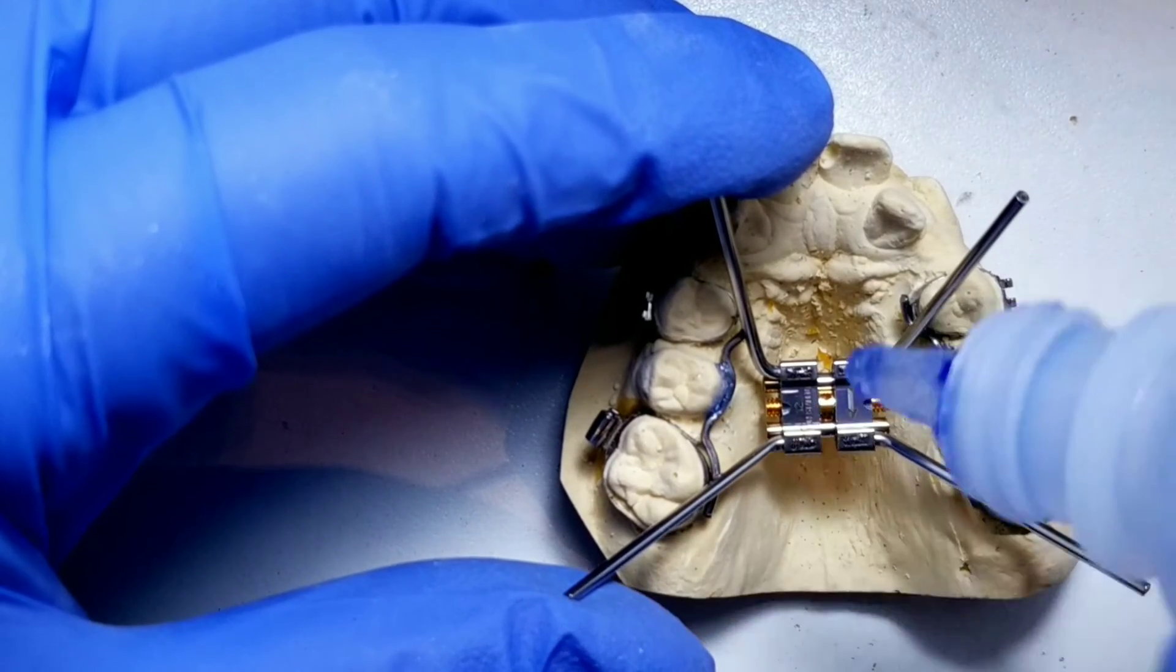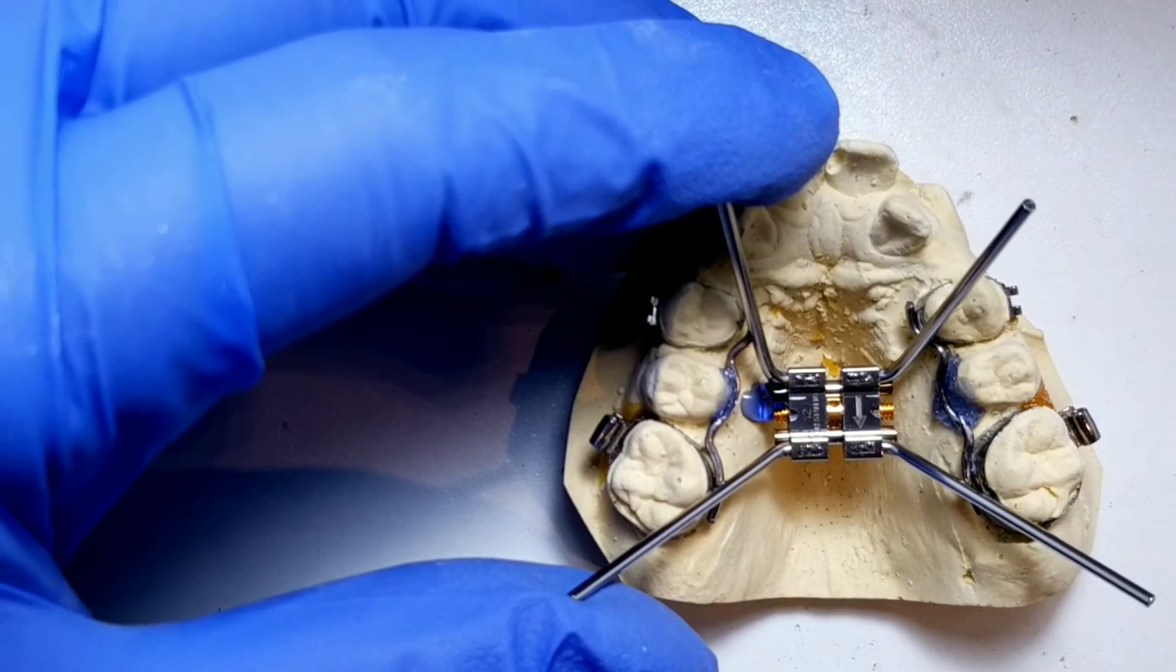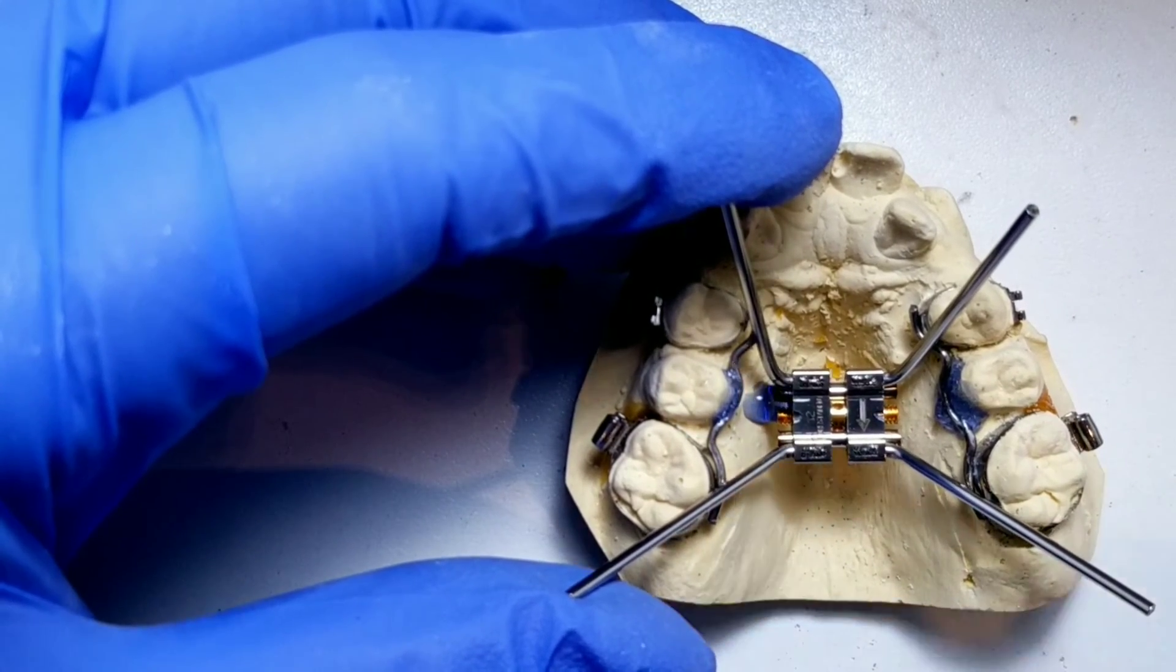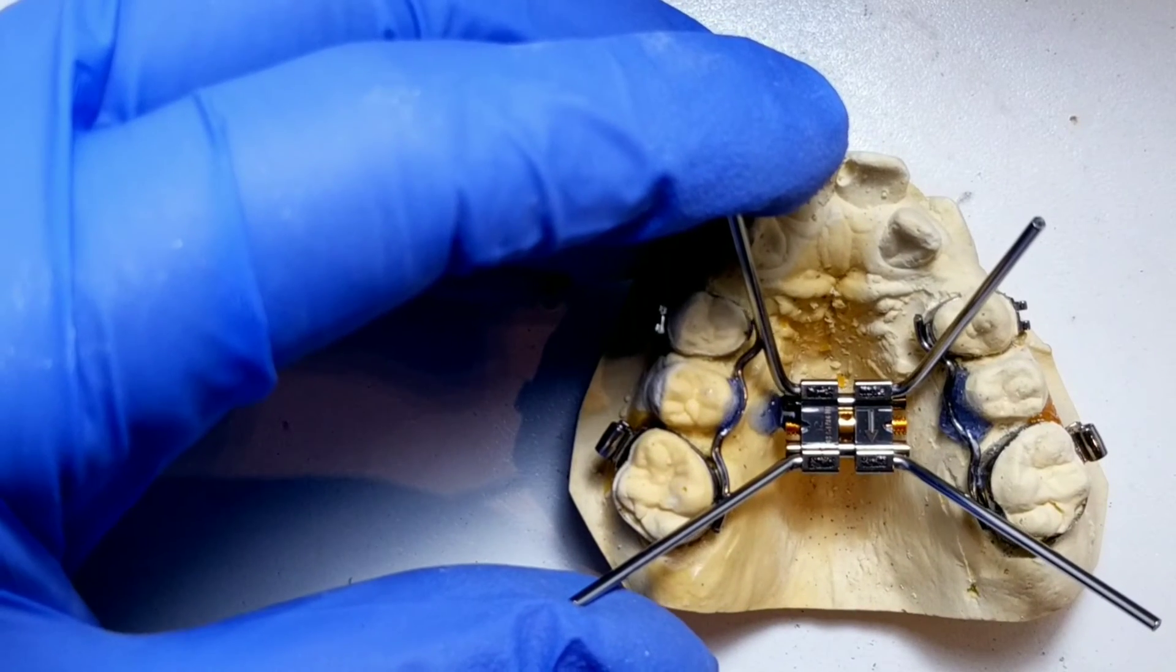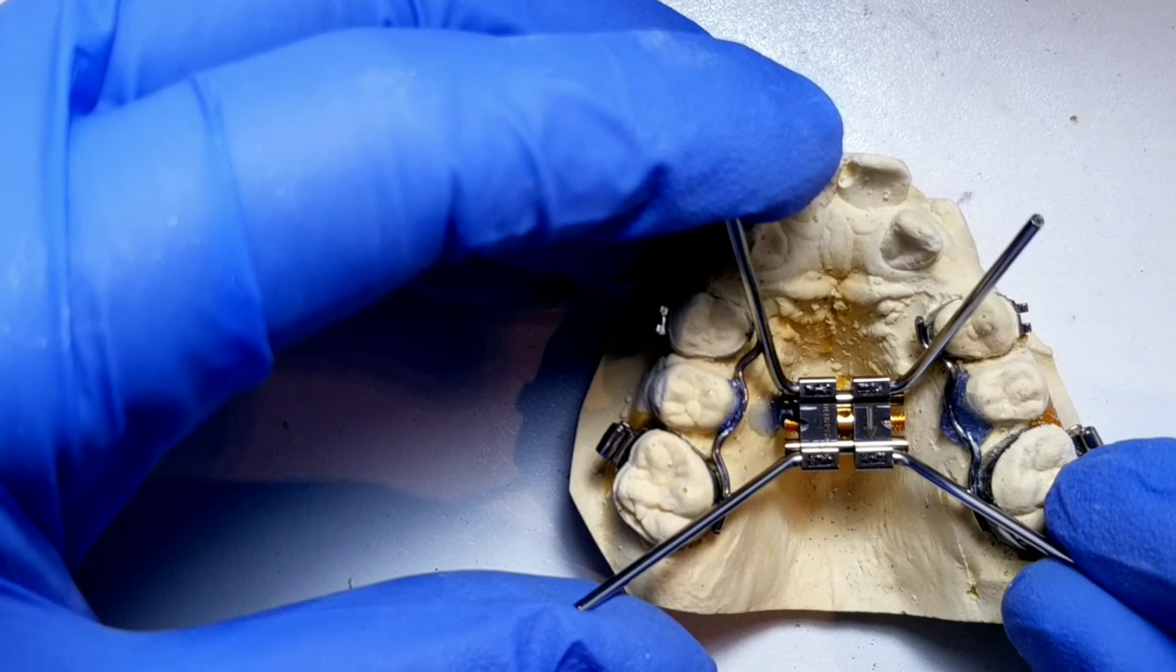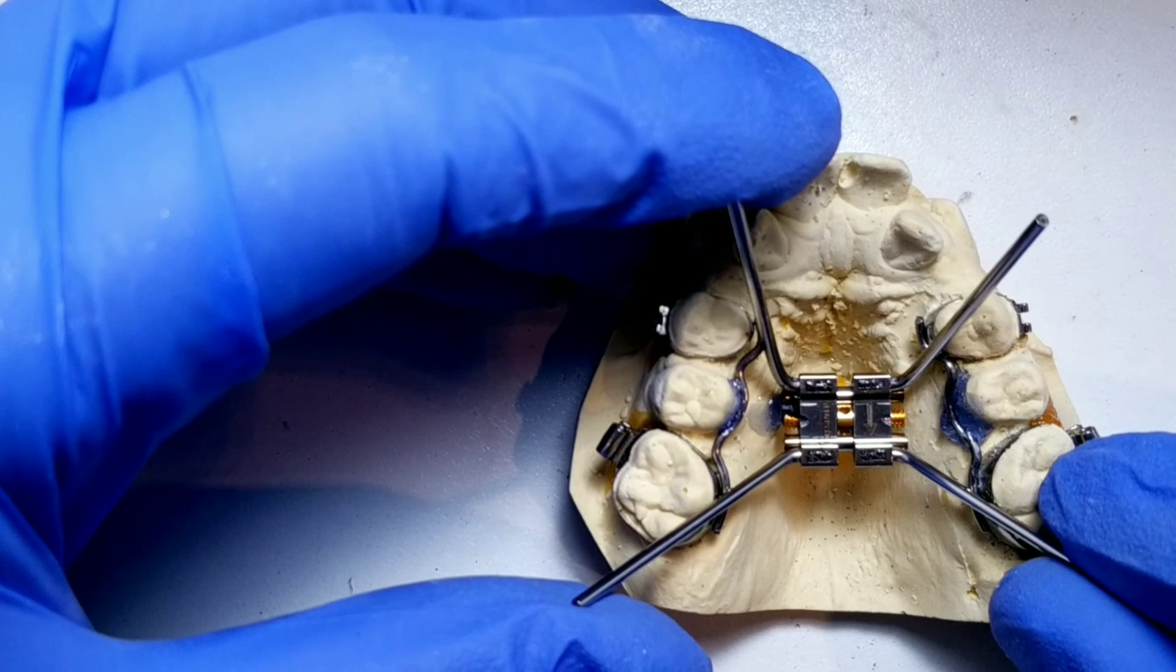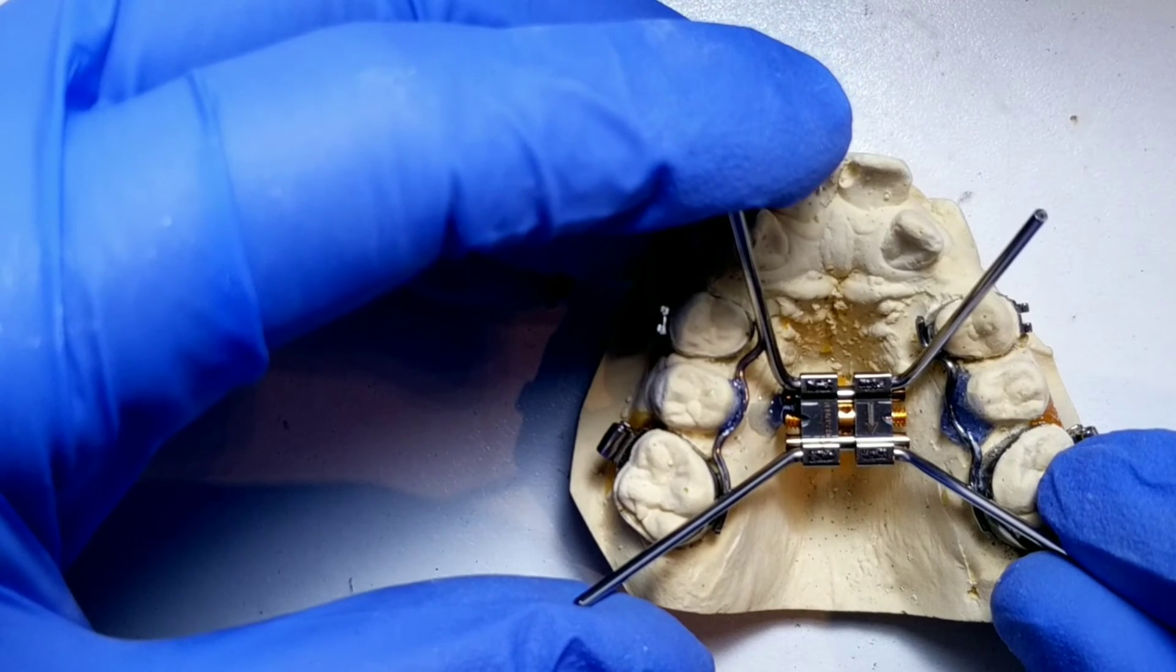Here I use some of my special glue that I use to glue my appliances down. I love working with this glue because I can spray it and activate it, and then I can move the screw around to make sure that I have the proper positioning that I really want. It doesn't glue right away. It gives me a couple seconds of working time, which is awesome.